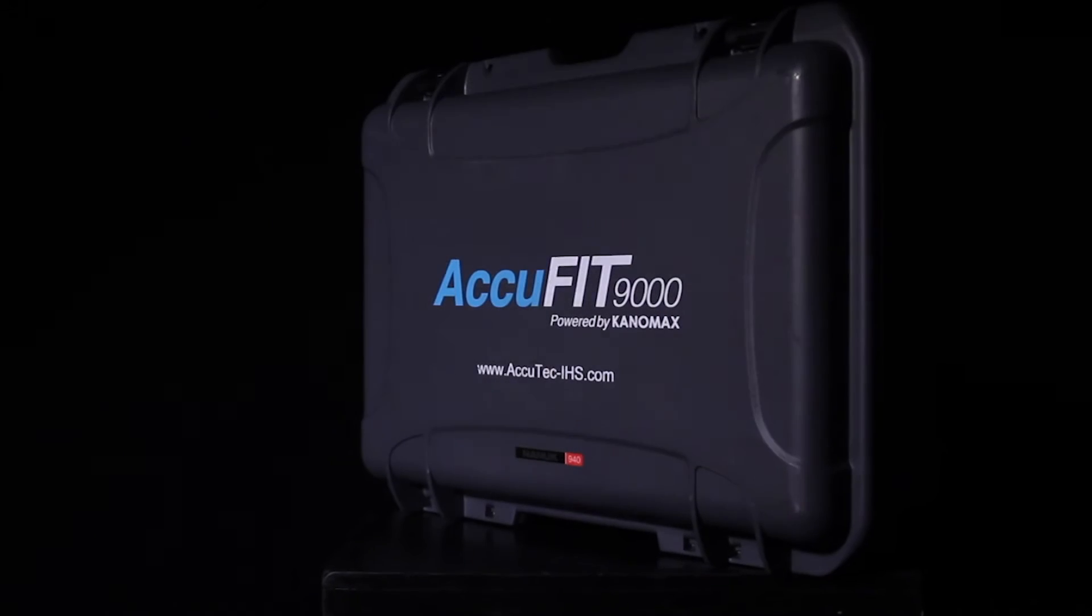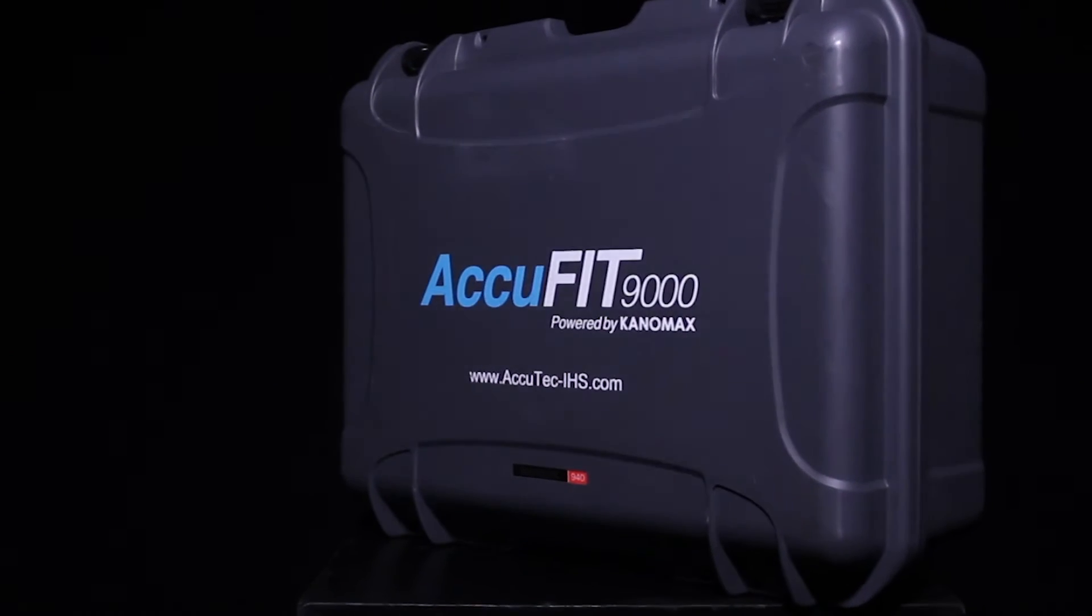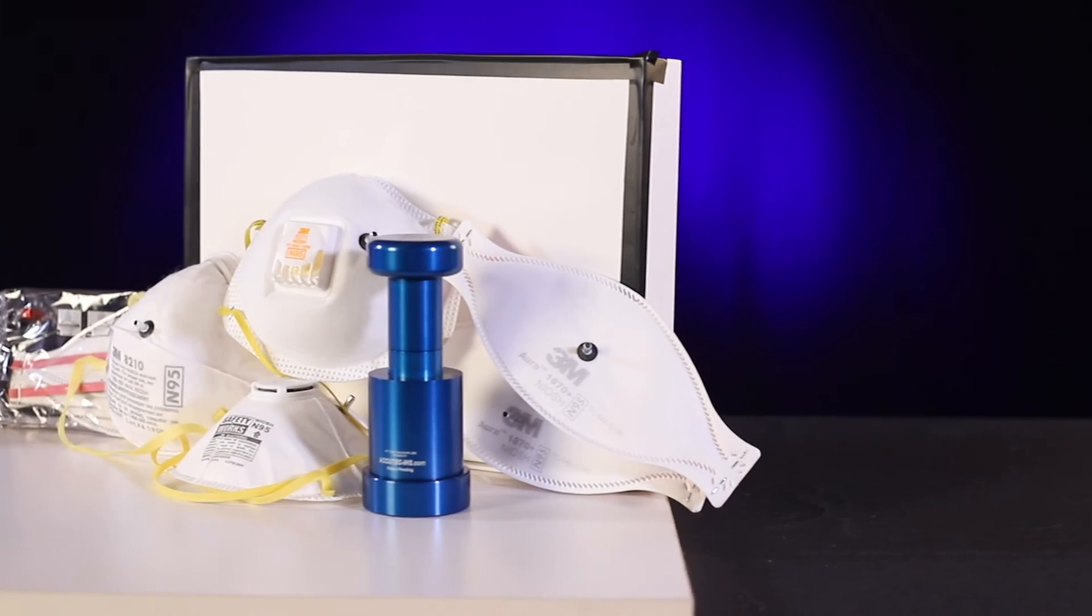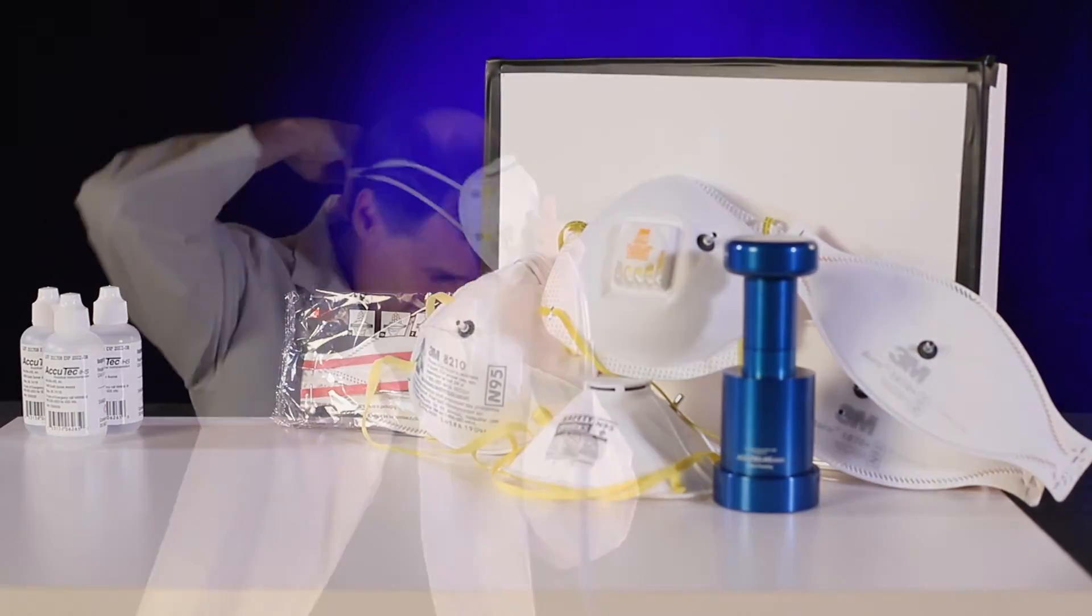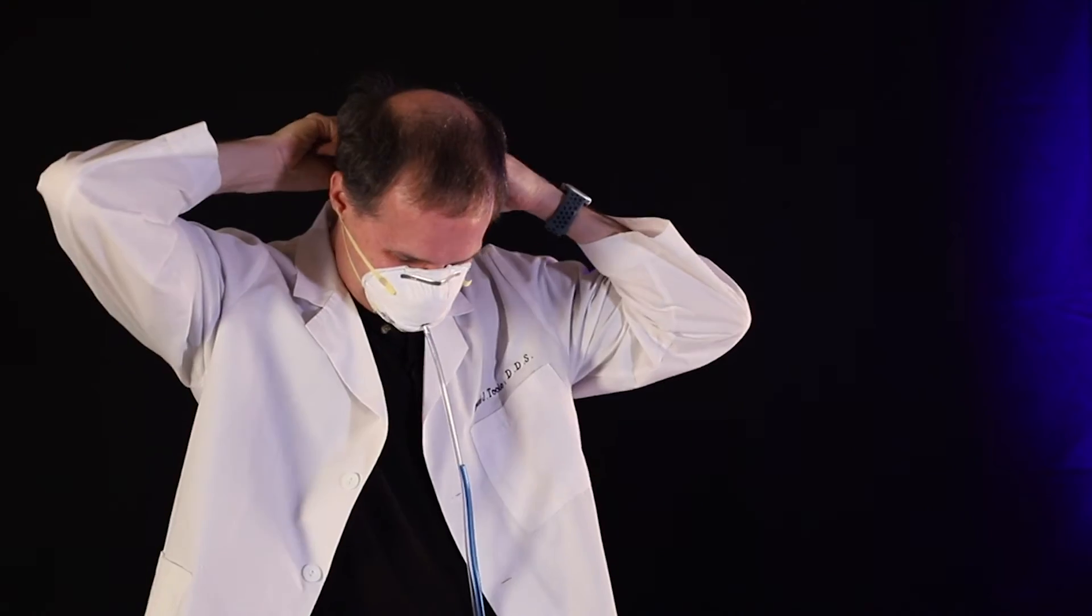The third benefit is in the initial selection of a respirator. The fit test takes about seven and a half minutes, but by using the real-time utility, you can determine whether or not a respirator will fit the test subject well enough to invest the time in performing a true fit test.